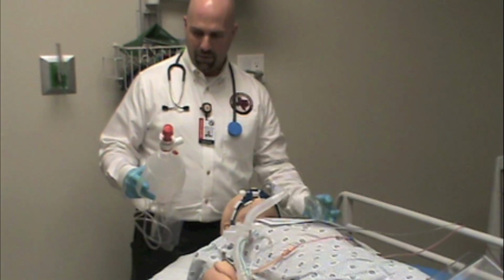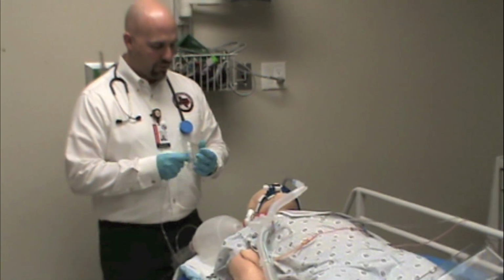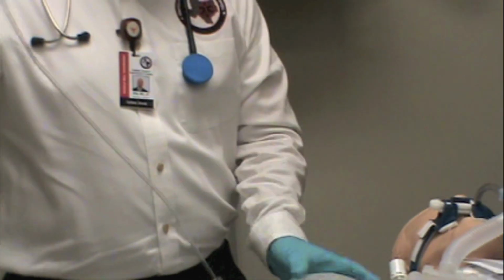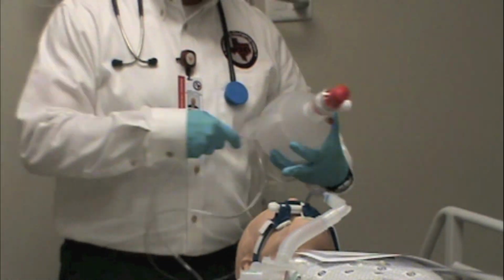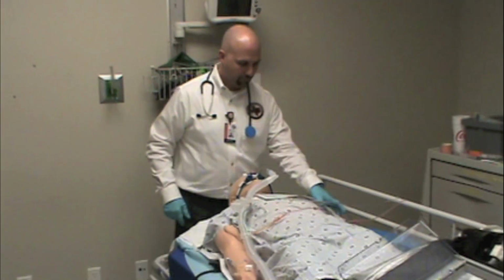So always make sure that you keep your BVM and your mask together. And I'll usually just run the tubing through the mask so that I always know exactly where my mask is, and it's just a second nature habit. So this should always be with you and readily available.